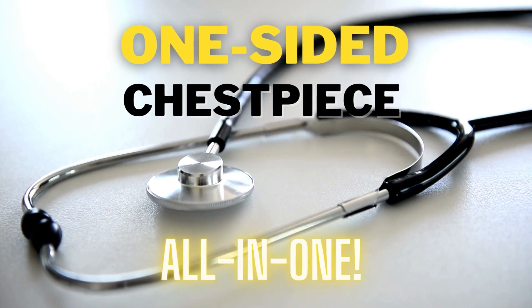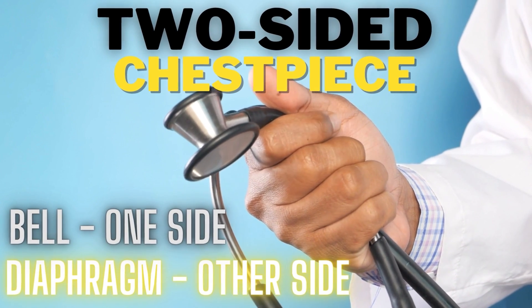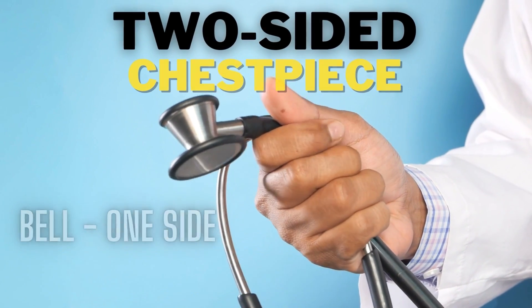Now that you know the difference between the diaphragm and the bell, it's really important to know how they work on the specific stethoscope you are using. Some stethoscopes may have a one-sided chest piece or a two-sided chest piece. The one-sided chest piece only has one large end piece, and it acts as both a bell and a diaphragm — think of it as a two-in-one deal. On the other hand, a two-sided stethoscope like the one I have here has the bell on one side and the diaphragm on the other.